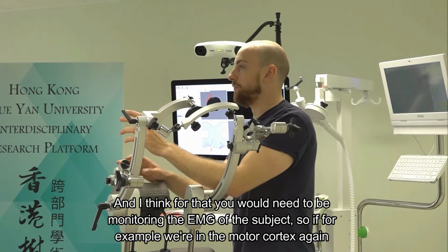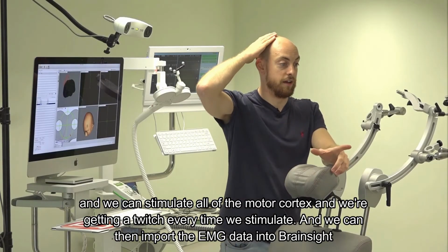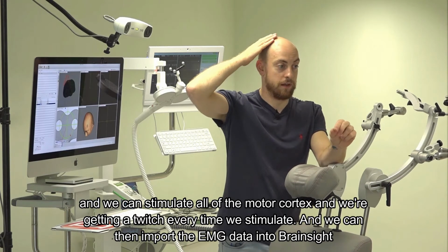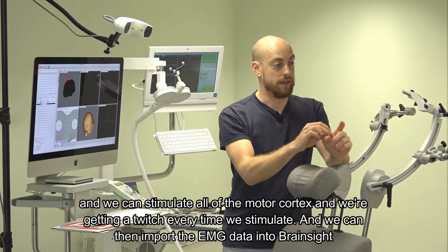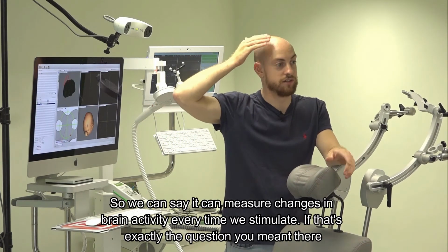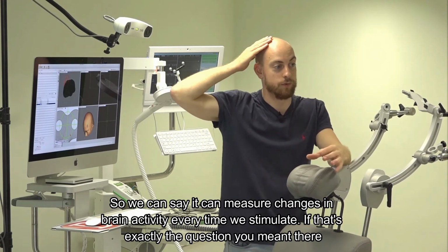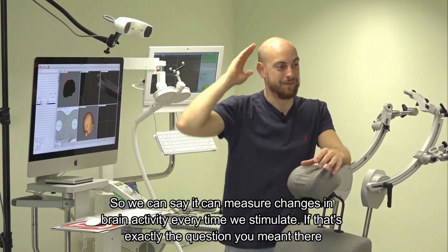If we're in the motor cortex, we can stimulate above it and get a twitch every time we stimulate, and we can then import the EMG data into BrainSight, so it can measure changes in brain activity every time we stimulate. Was that the question you meant?